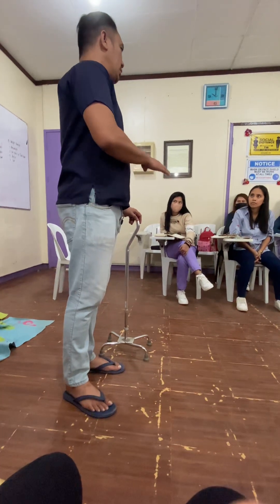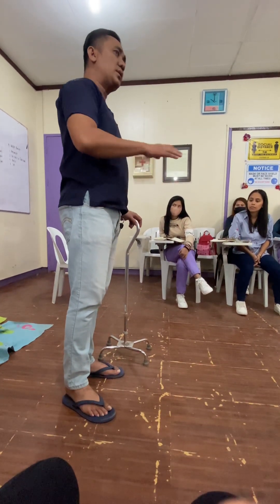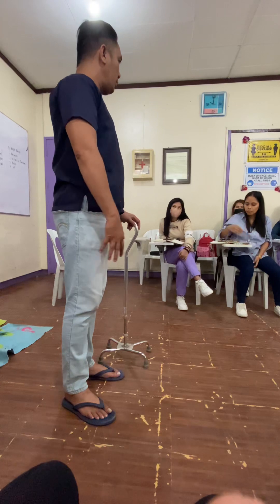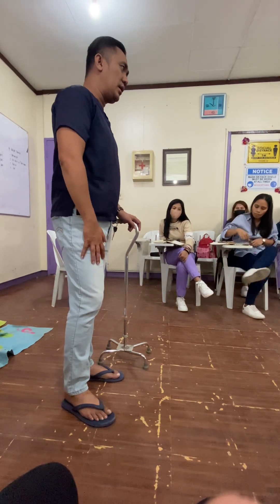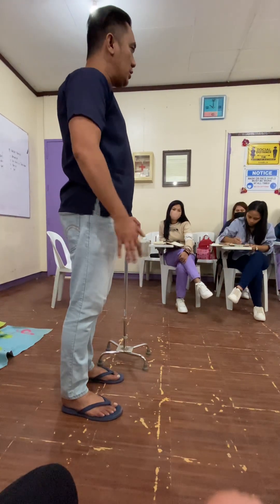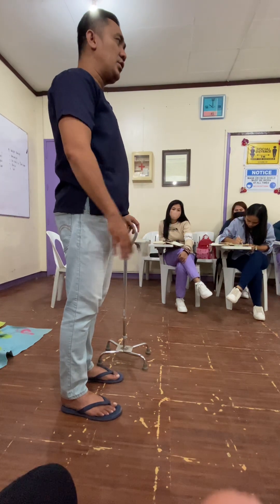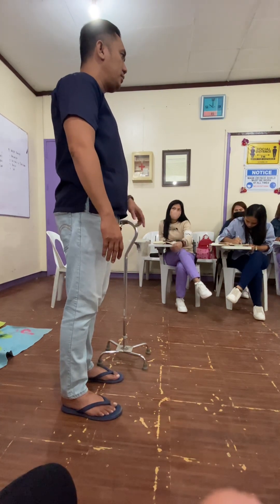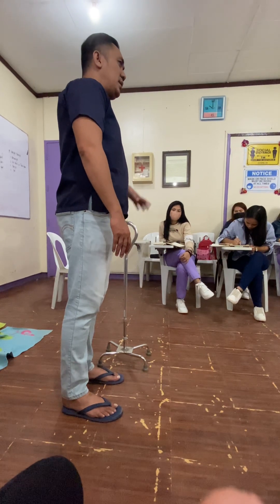You have to make sure that the cane is located on the opposite side of your injured or weak leg. So for example, if my right leg is my injured leg, then the cane should be on the left side.